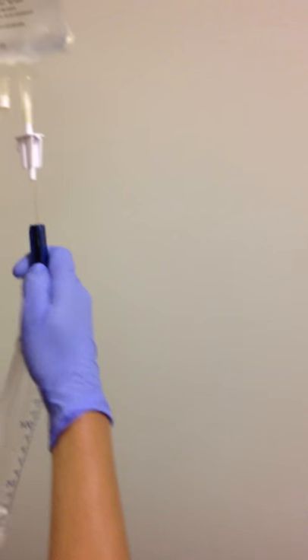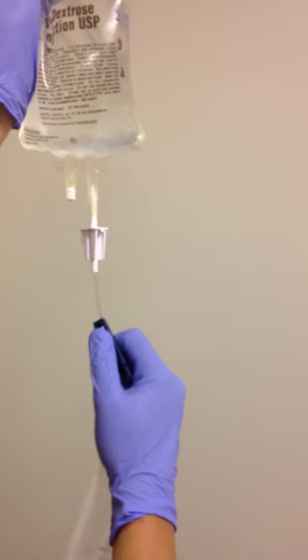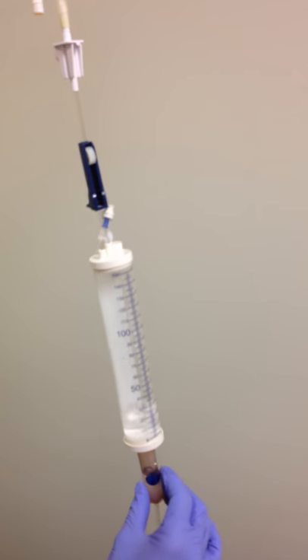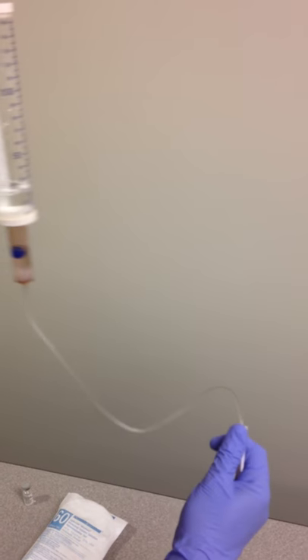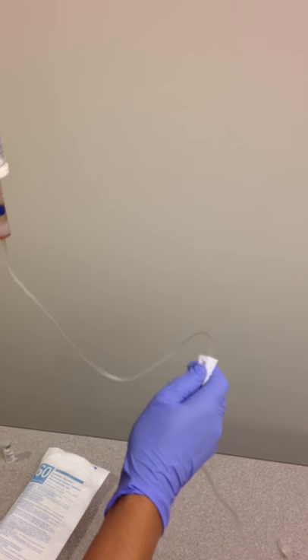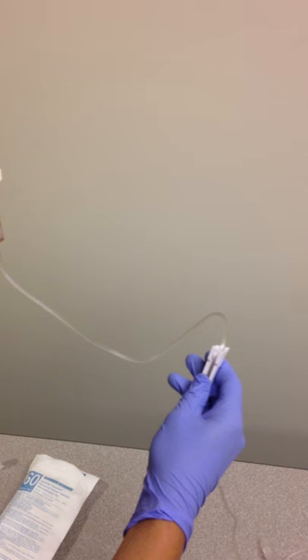We'll open the first thumb wheel to allow for a little bit of fluid into the metered chamber, squeeze and get a little bit of fluid into the drip chamber, and then open the thumb wheel that goes to the patient to drain all the air out. Once the air is drained from the line, close off the line to the patient.